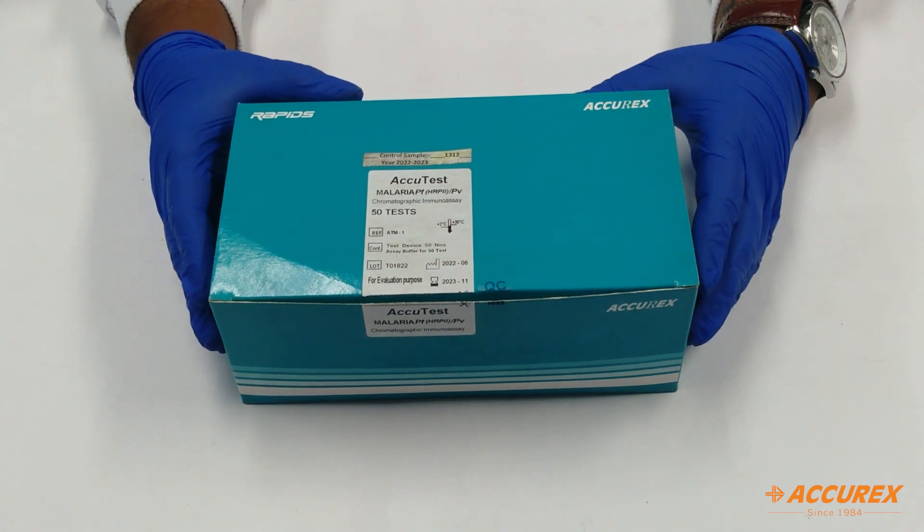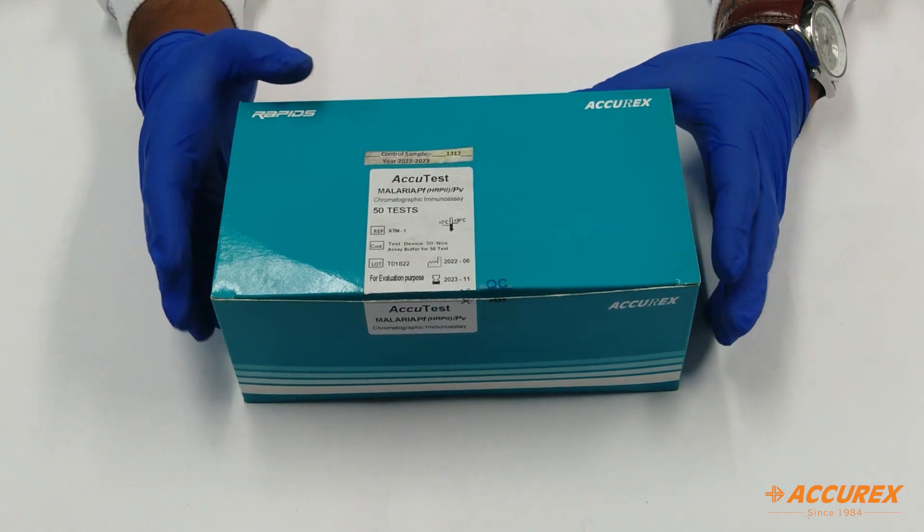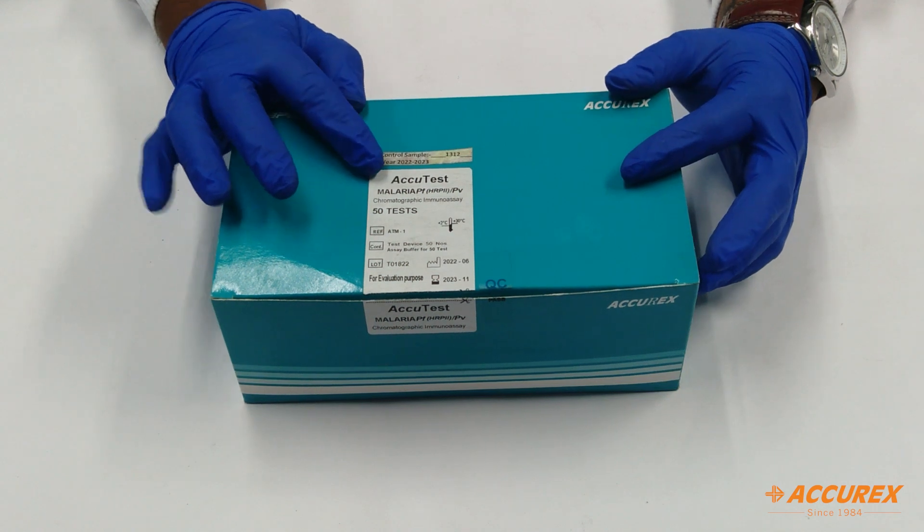Hello everyone, welcome to Accurex YouTube channel. So today we have brought the product called Malaria PF and PV.